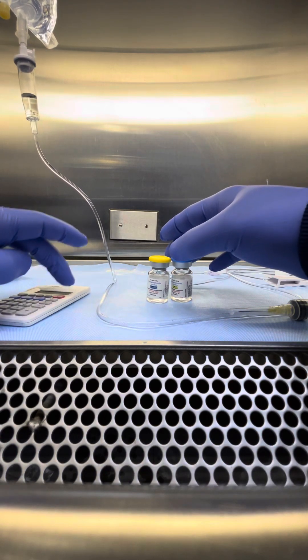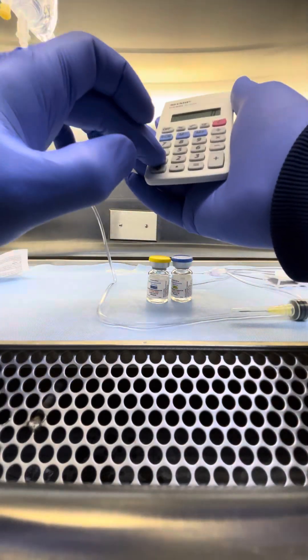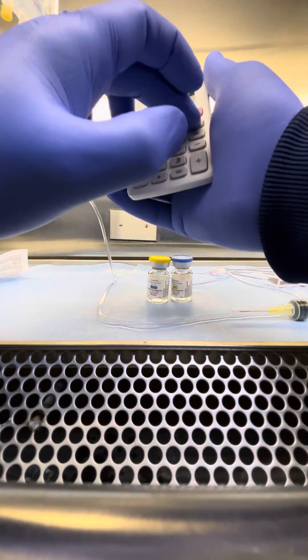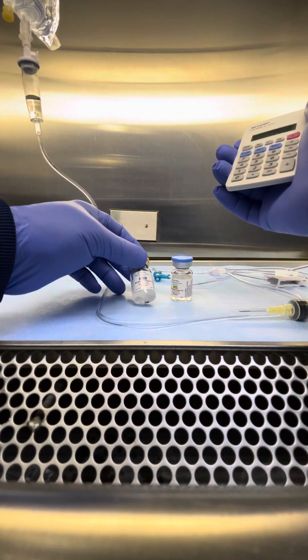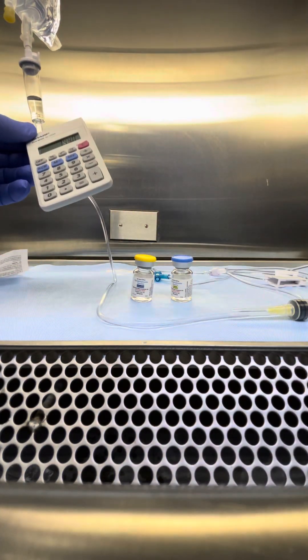And we're going to go ahead and factor that, how much I'm supposed to take out, and divide.